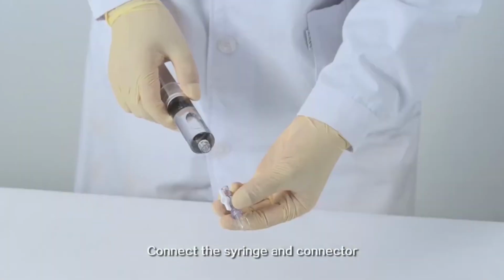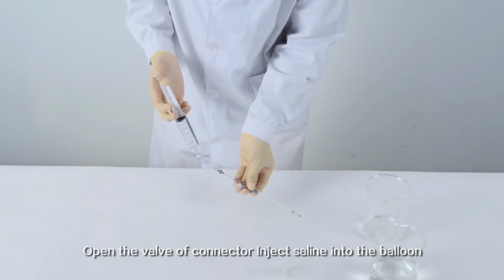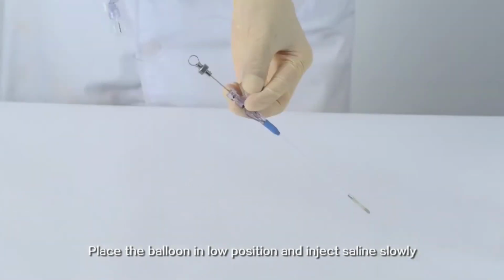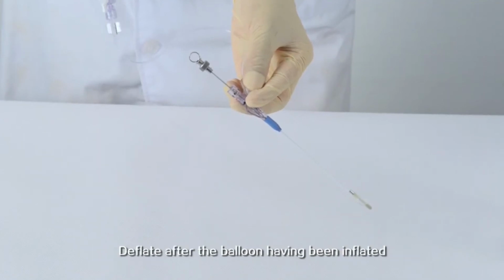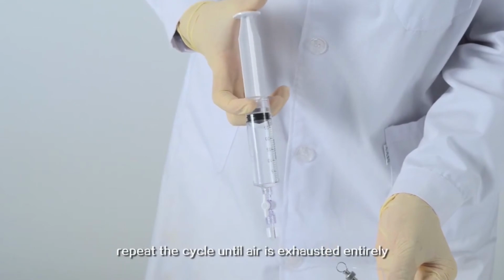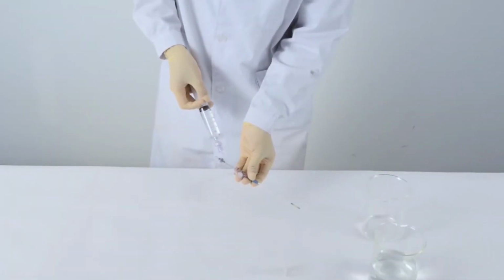Connect the syringe and connector. Open the valve of the connector. Inject saline into the balloon. Place the balloon in a low position and inject saline slowly. Deflate after the balloon has been inflated. Repeat the cycle until air is exhausted entirely.